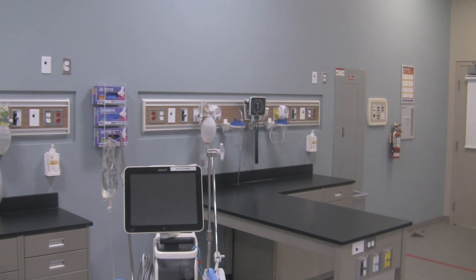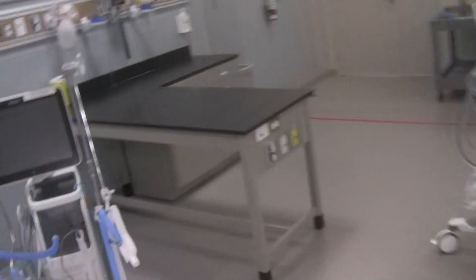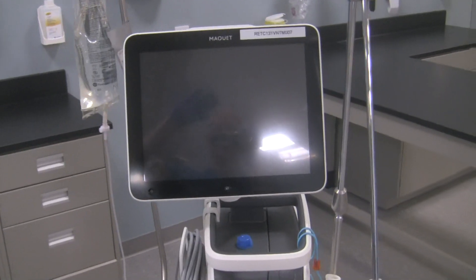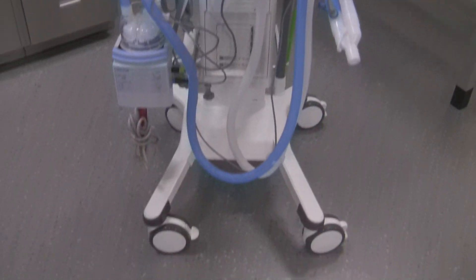I'll take the camera off the tripod again, so bear with me while we go around here. Alrighty, we're back in business — you can see me on the screen. Anyways, this is the Servo U ventilator.